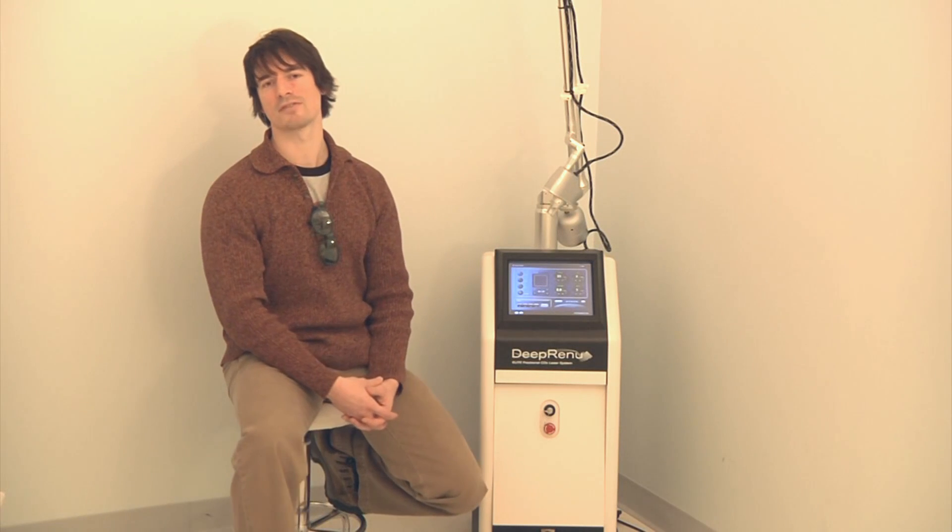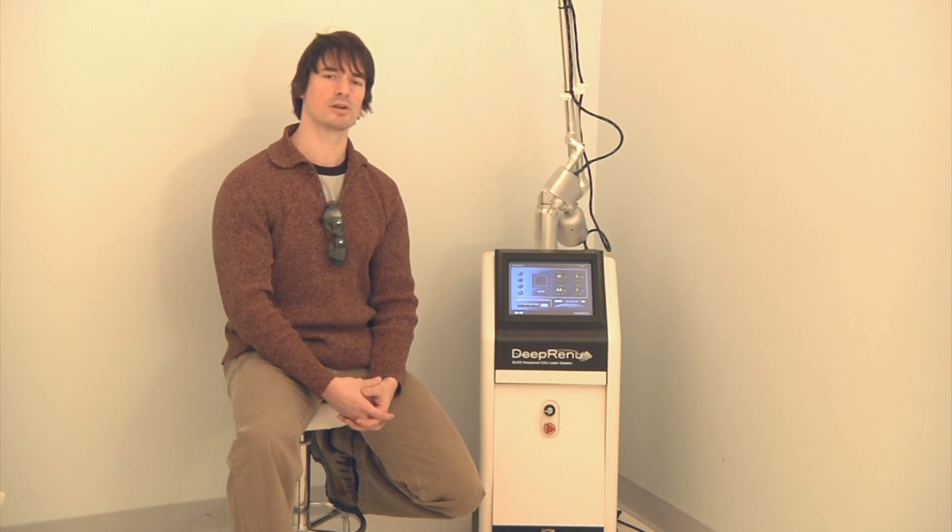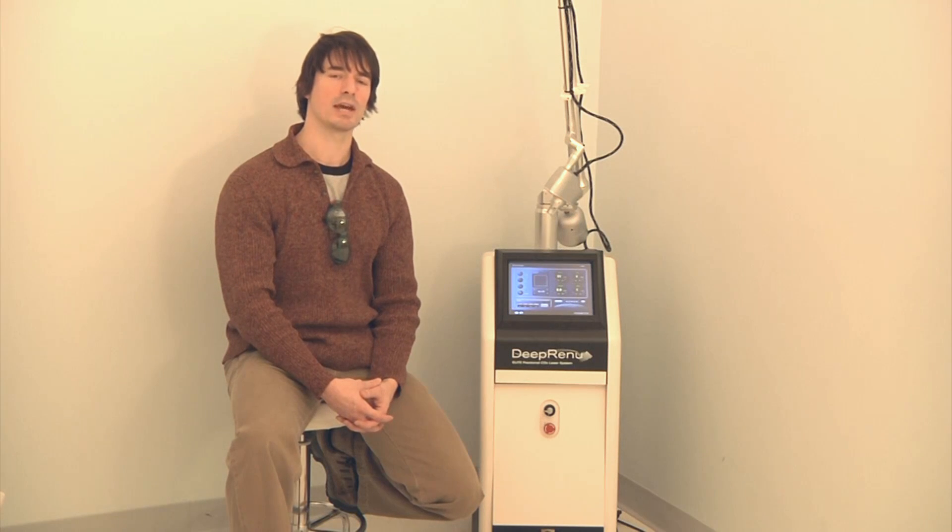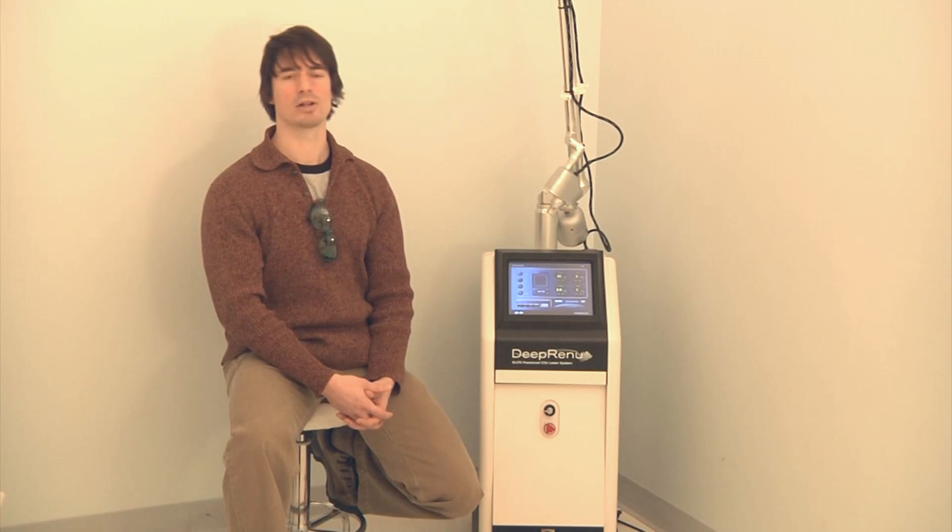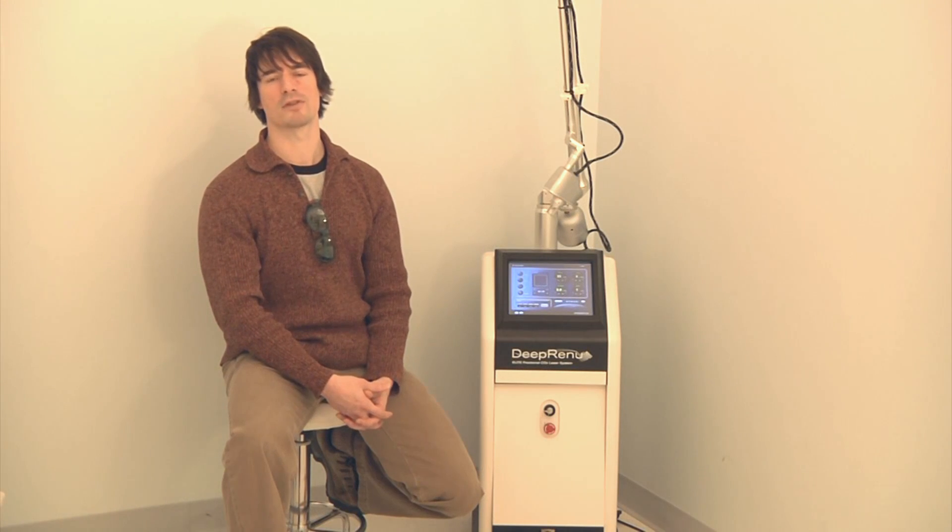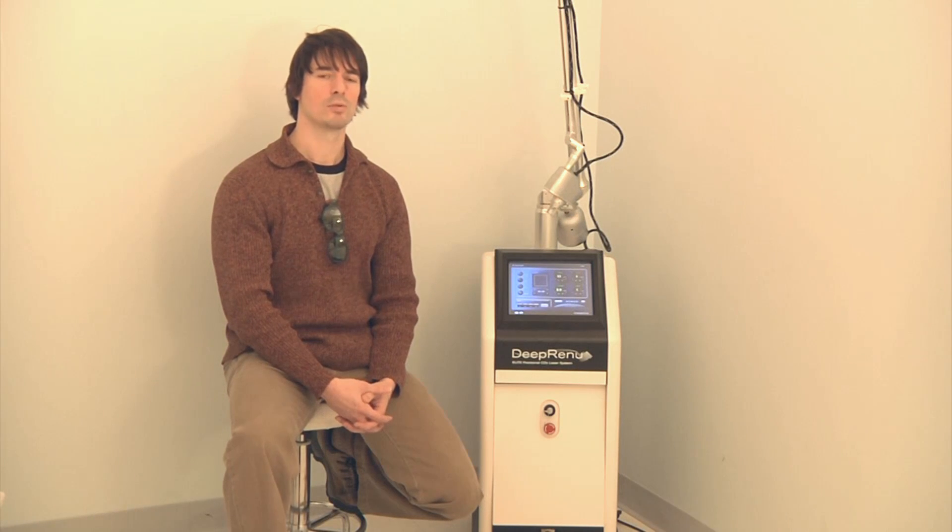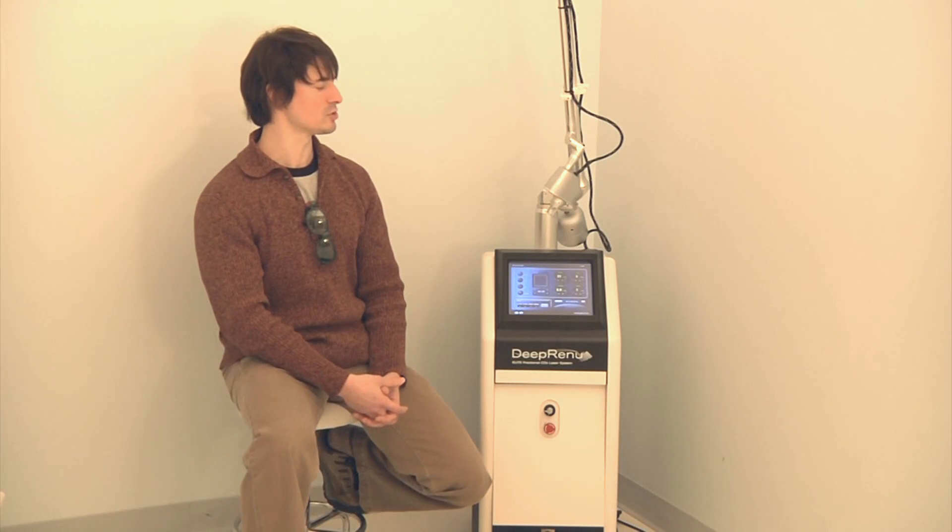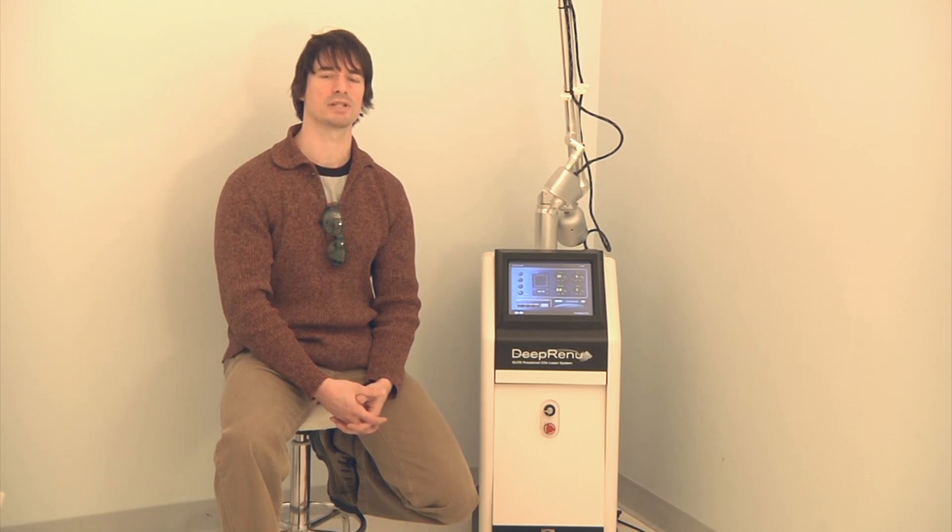Glass optical resonator cavities often have a life expectancy of between 1,500 to 3,000 hours, at which time they need to be repaired or replaced. The metal optical resonator cavities, however, have life expectancies on the order of 10,000 to 30,000 hours, which for normal usage results in a life expectancy of 5 to 7 years before replacement is necessary.